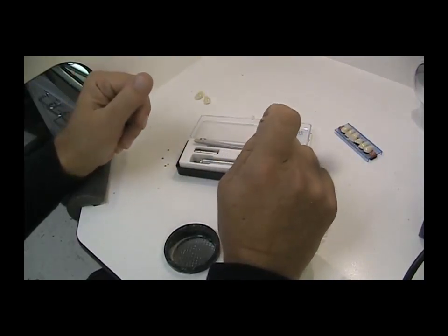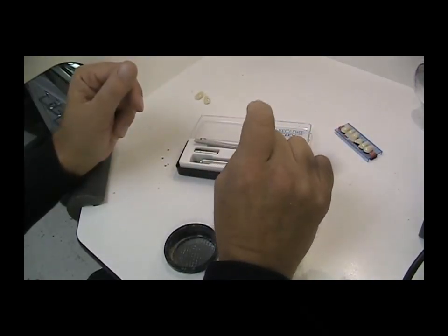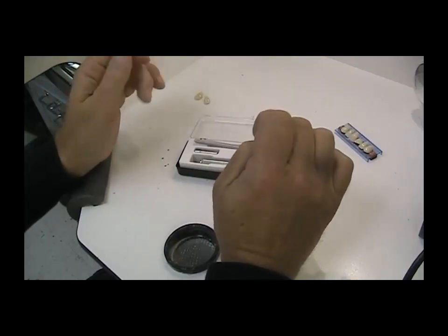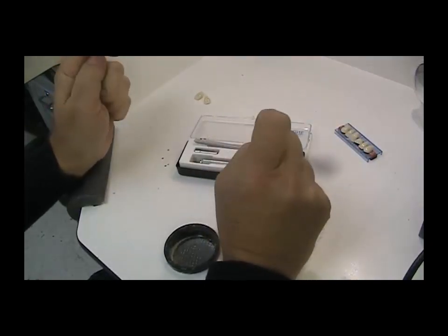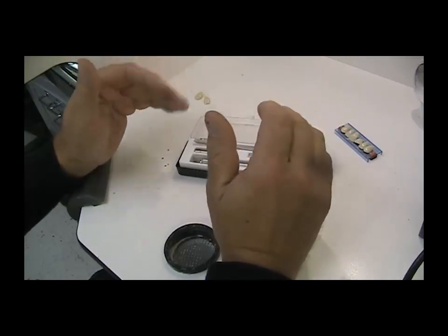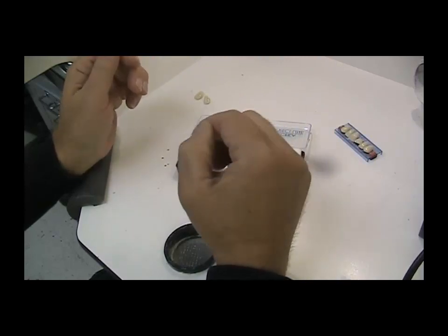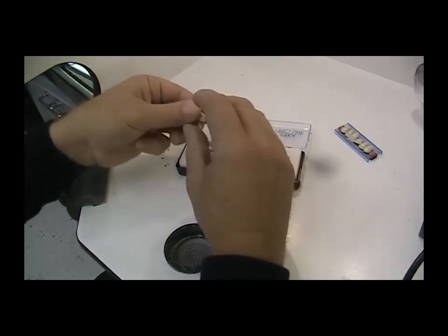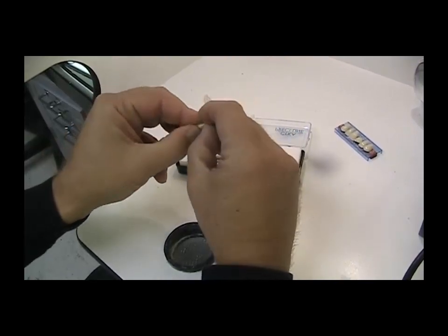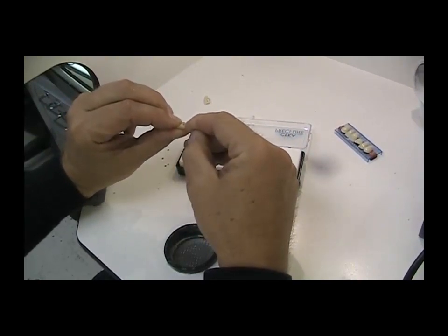If you've read other articles and seen other videos I've made, I've addressed those issues with diatorics, slots, ridge lap locks, and all kinds of neat little ways of cutting in the back of the tooth. What I found with this PermaRet kit is a totally different concept — we affix pins to the backs of the teeth rather than cut in slots. This is good because those translucent teeth tend to show up as dark spots when we grind into them. It's the same principle used for porcelain denture teeth: porcelain doesn't bond to acrylic, so manufacturers incorporate pins into the backside of the teeth for retention.